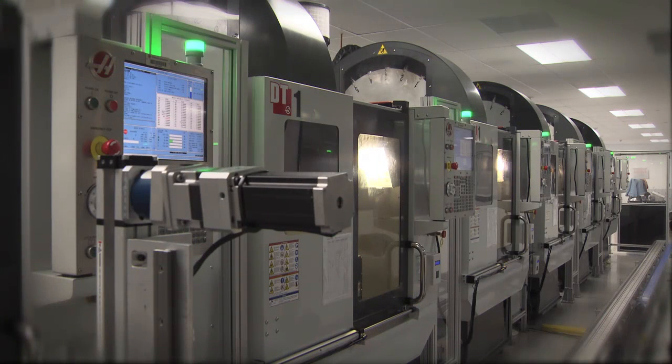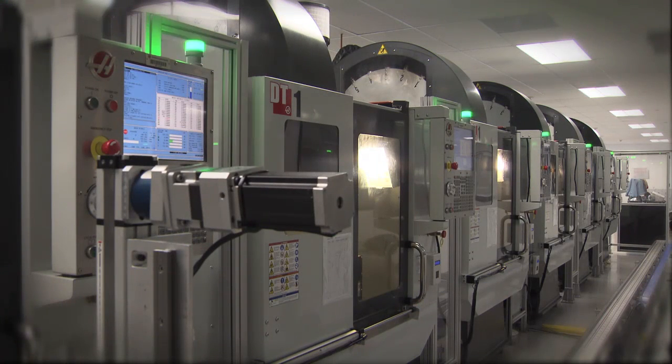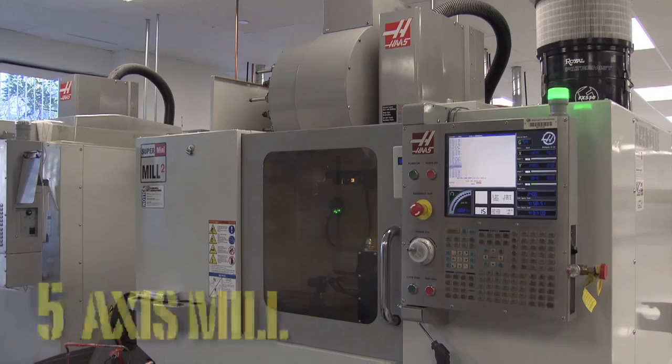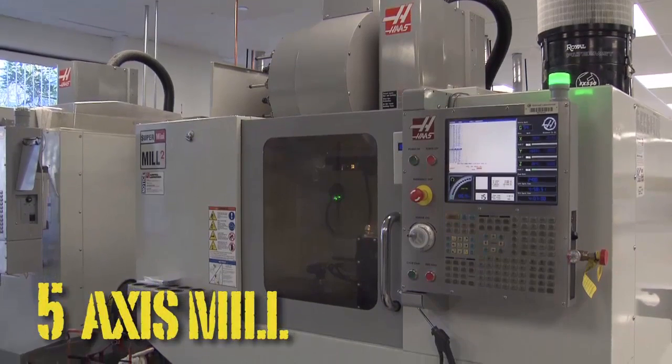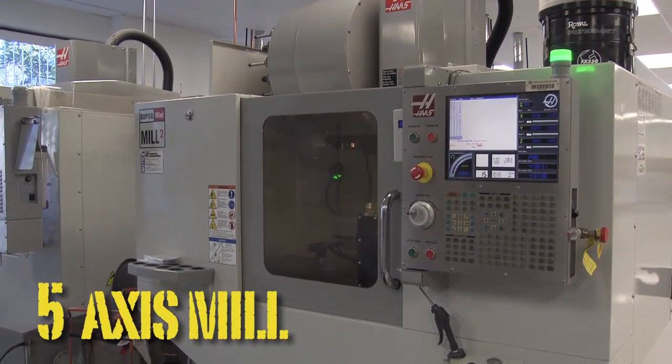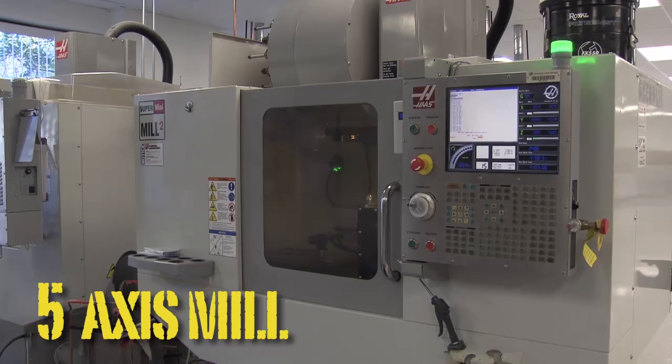Today's dental milling machines boast models of 4 and 5 axes, with 5-axis models extending the capabilities of their 4-axis counterparts.